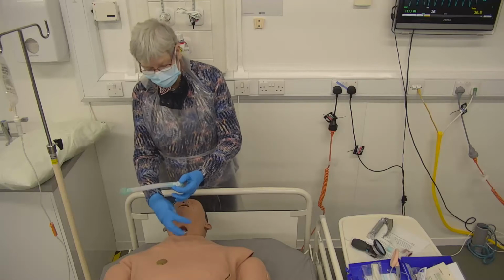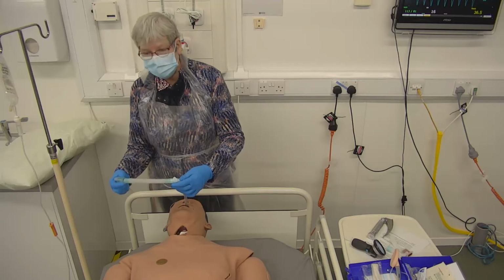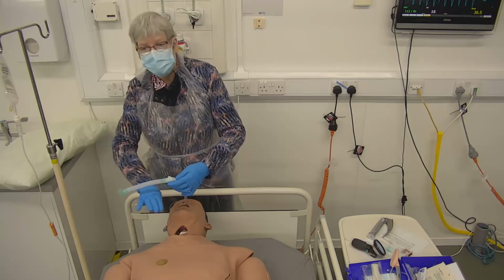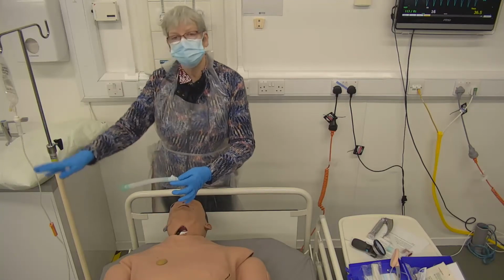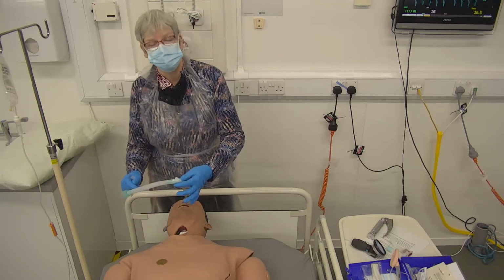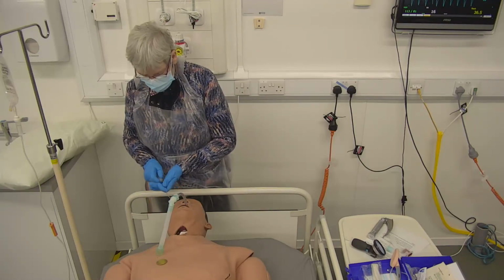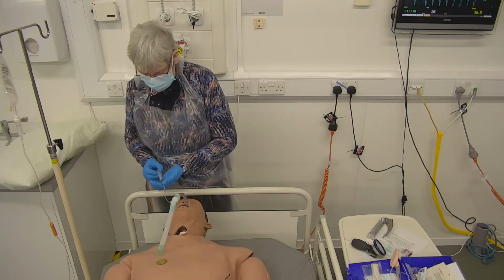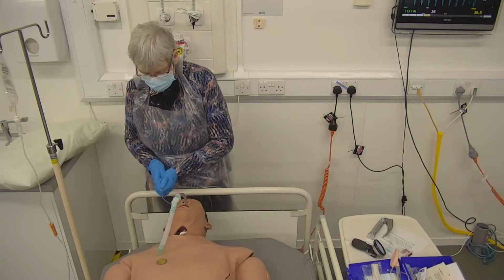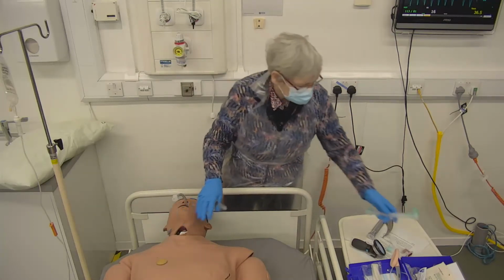And you can see that by having that balloon nice and tightly sealed, then that person's breathing, the amount of air, how quickly that air, what pressure that air gets to, is all controlled by the ventilator that will be at the side. So I'm just going to let that down and take it out, because there's another way of being ventilated. Because sometimes when people have been on a ventilator for a little while, and actually it's going to take a little while for them to come off that ventilation, then what they do is a tracheostomy.